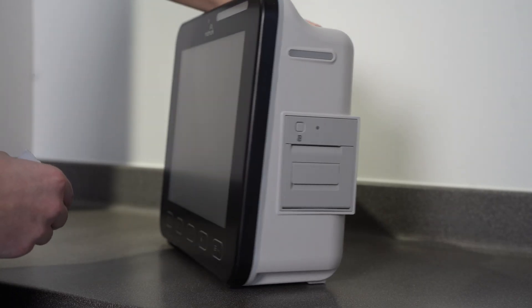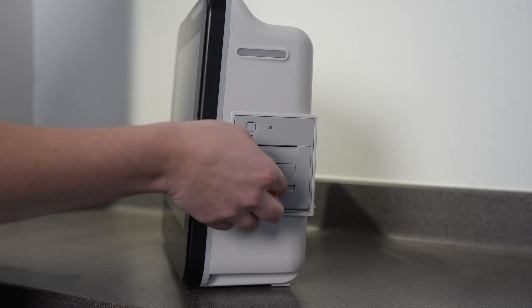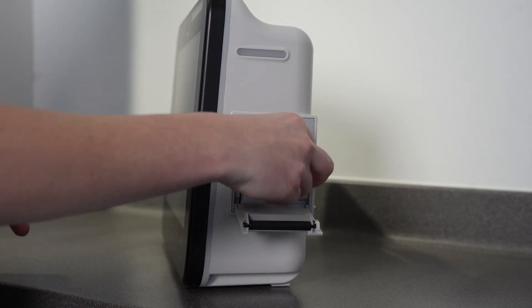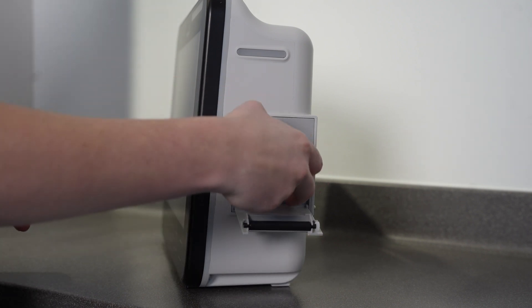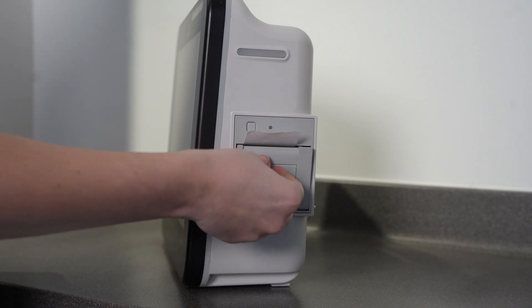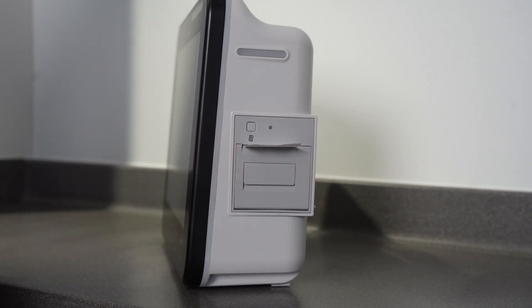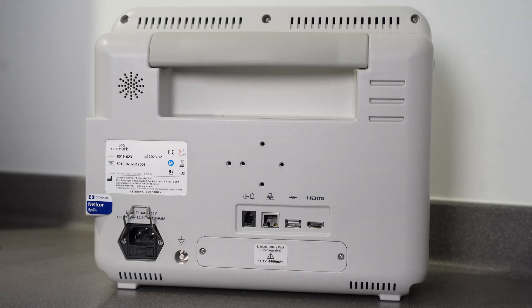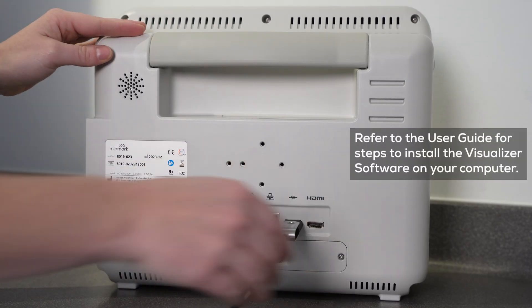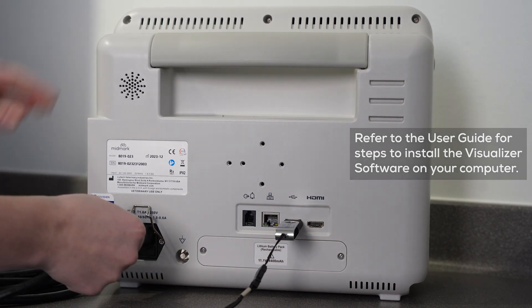Let's begin with the printer. On the right side of the monitor is the printer panel. Open the printer compartment and insert a roll of paper with the paper coming off the bottom of the roll. Pull enough paper from the roll so it hangs over the door once the door is closed. On the back of the monitor, plug the visualizer USB drive into the USB port and attach the power cord.